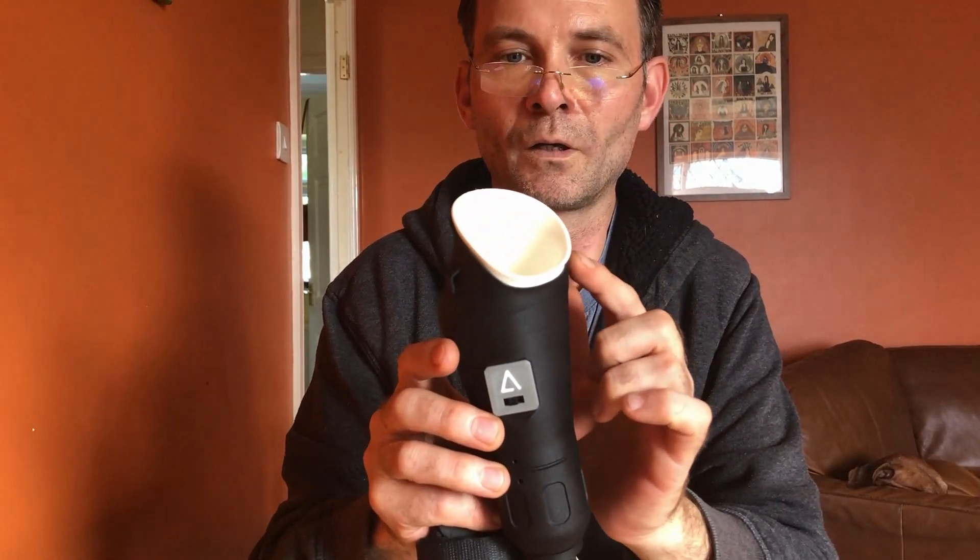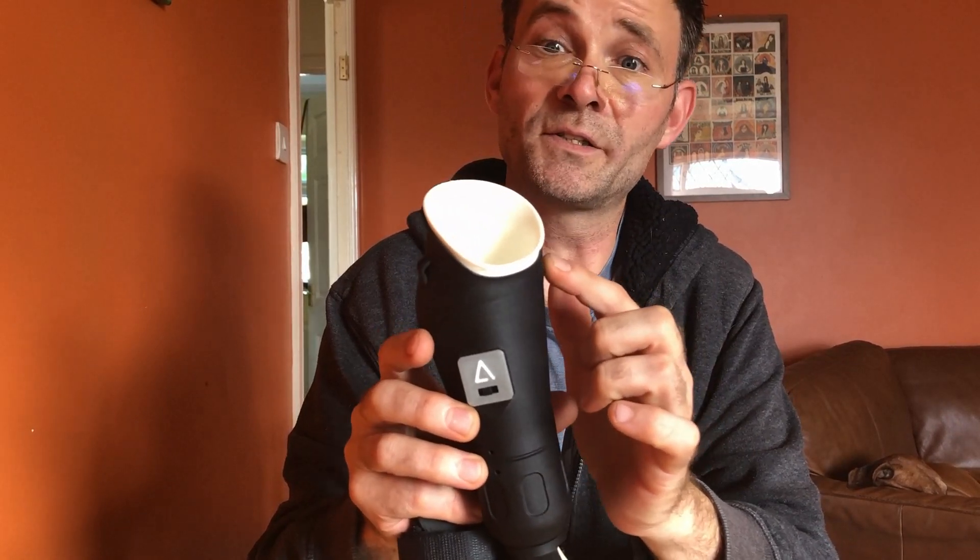The next step will be to start to introduce control using EMG sensors that are going to be mounted here and here. With the help of our university partners, we should be able to control the wrist using linear control.